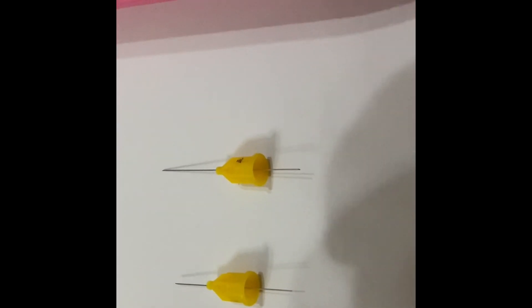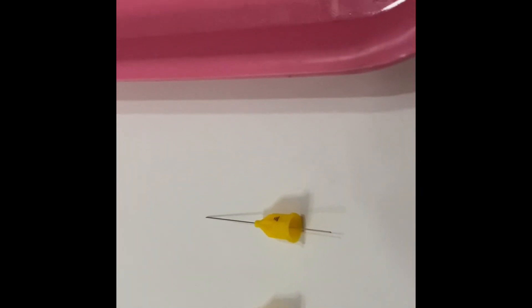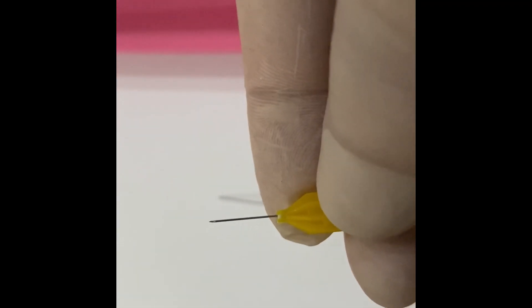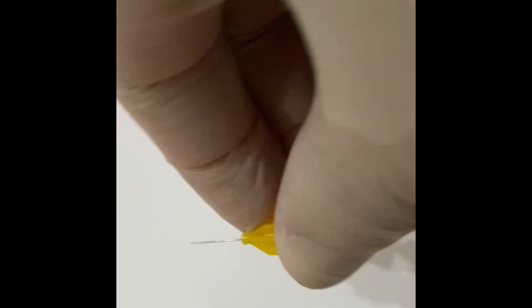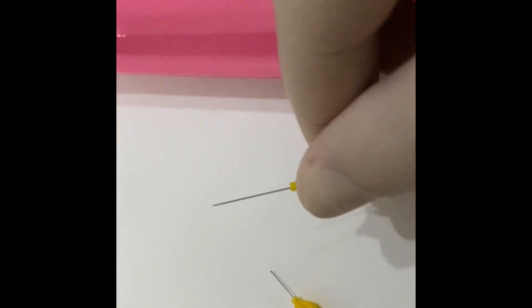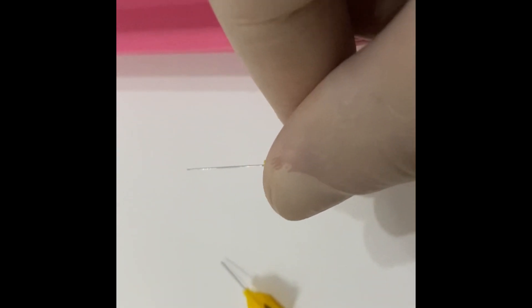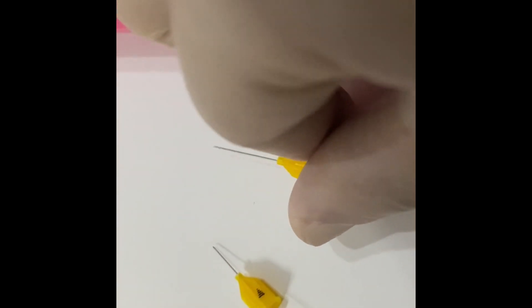Regarding the needle, we have three sizes: ultra short, short, and long. The long needle is not used in pediatric dentistry. The ultra short needle is about 10 millimeters in length and is used for infiltration and intraosseous injection. The short needle is used for inferior dental block in small kids, while for older patients we may use the long needle.